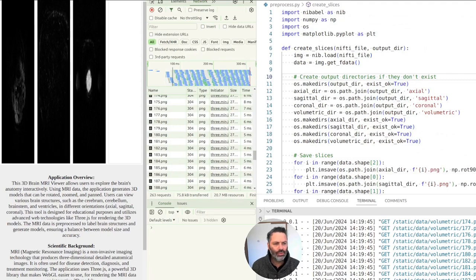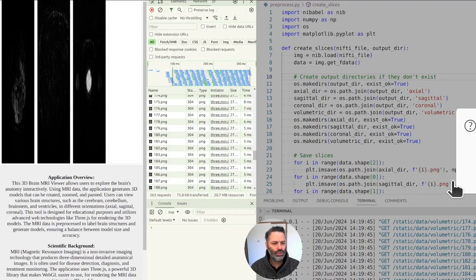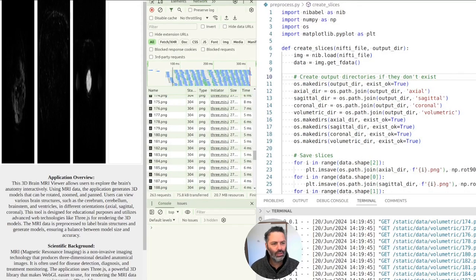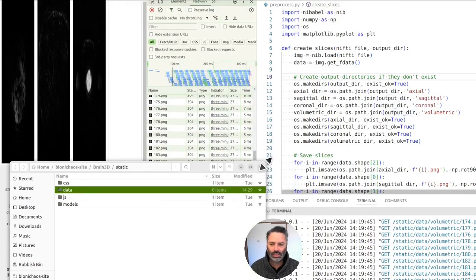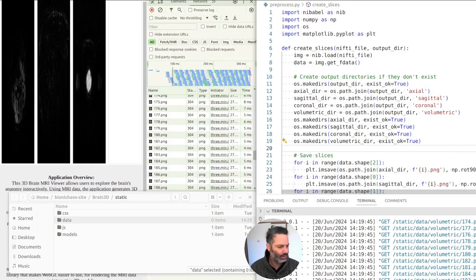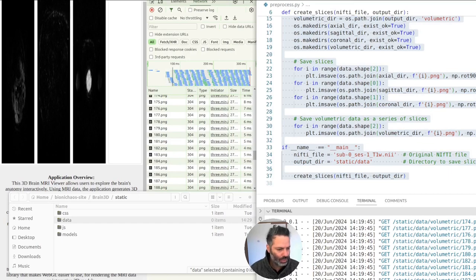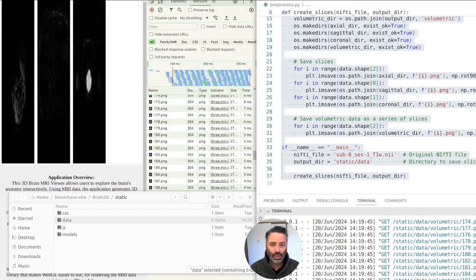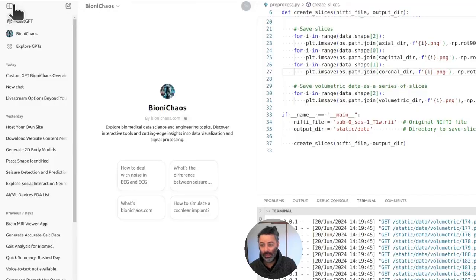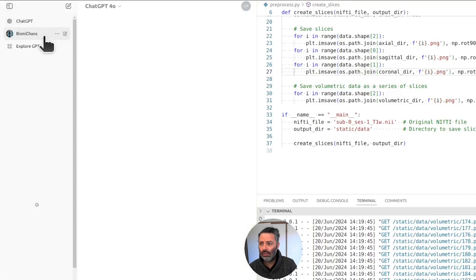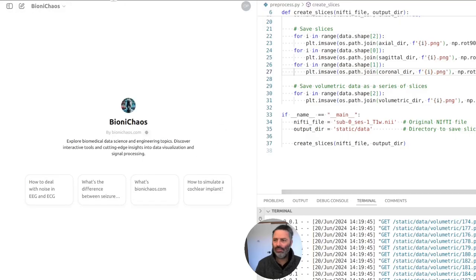So the model will be a JSON file. For the preprocessing again, we need to delete the volumetric data. We have the static data directory — let's just get rid of all of it. Currently it has zero files. We're making progress. Can we regenerate the script in the preprocess Python file? We've made our own custom GPT — relying on ChatGPT way too much.